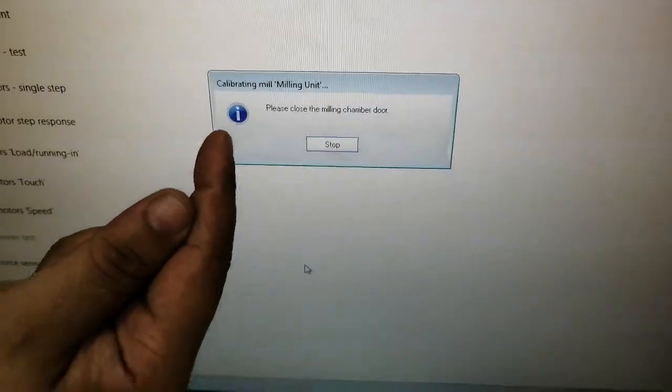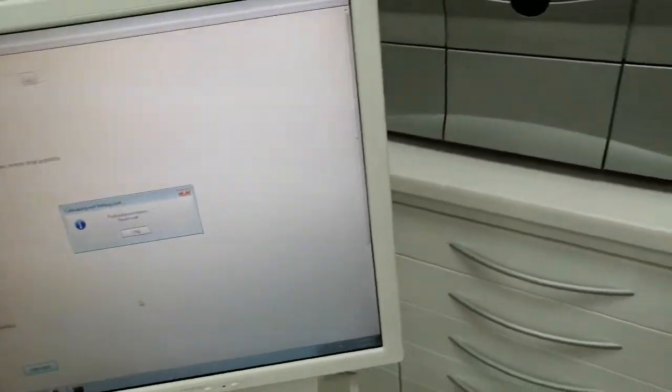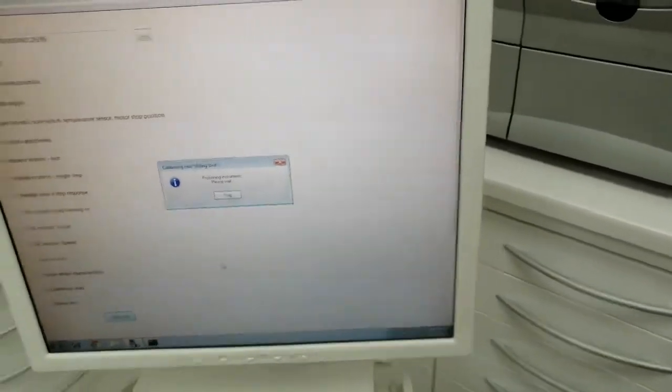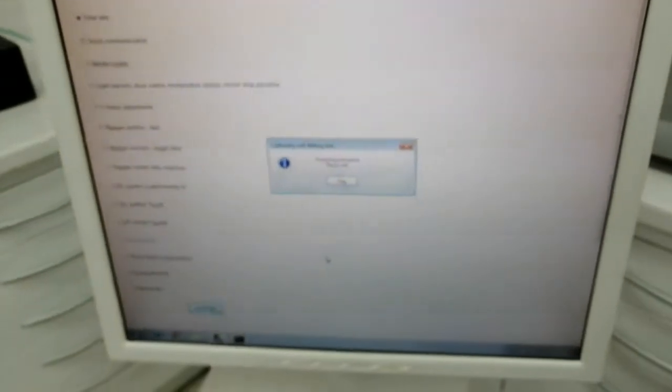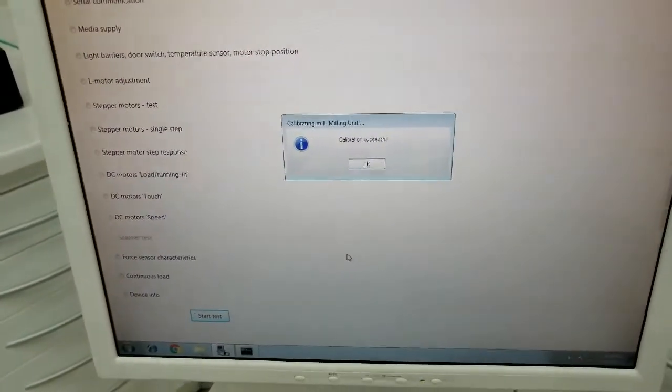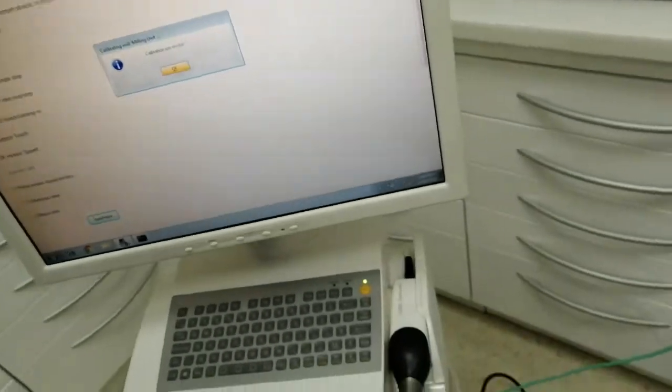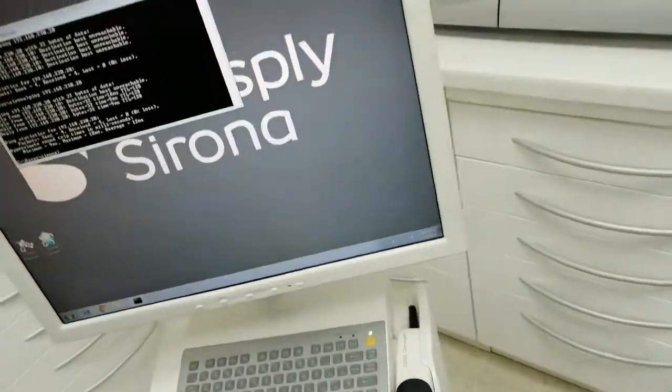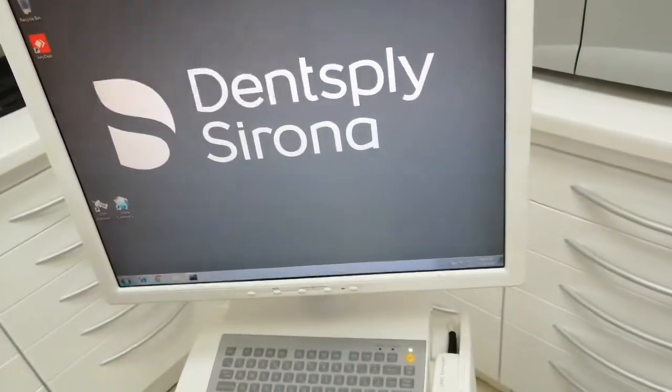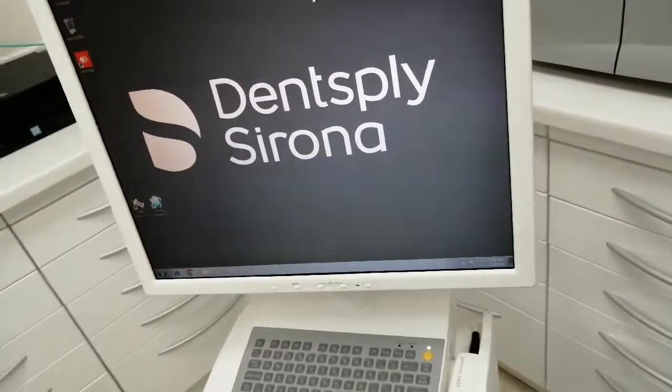Please close the door - the door is open. Okay, calibration is successful. Easy? Easy. This calibration should be done about once a month, every month. Or I tell you, it will give you a message when needed.